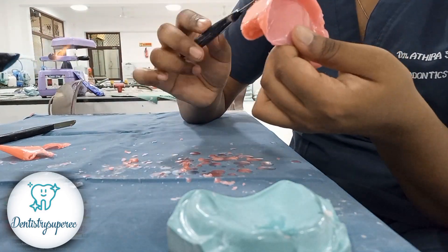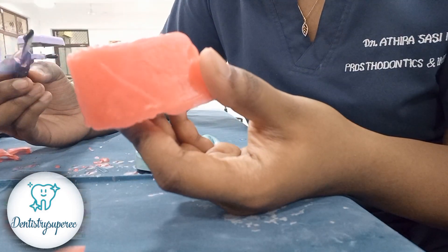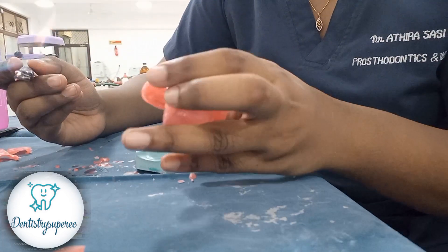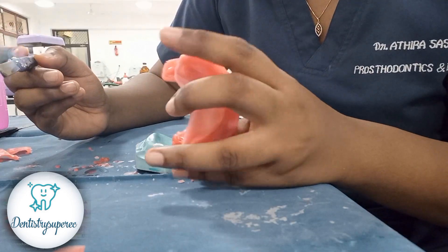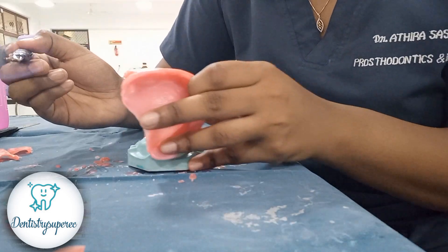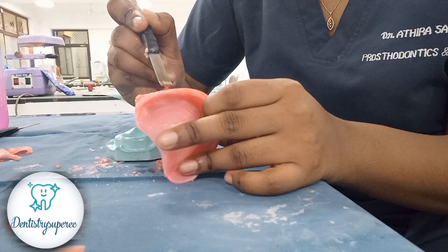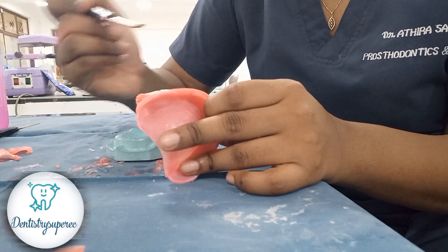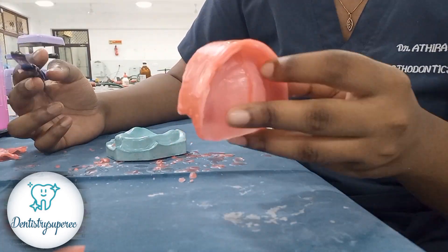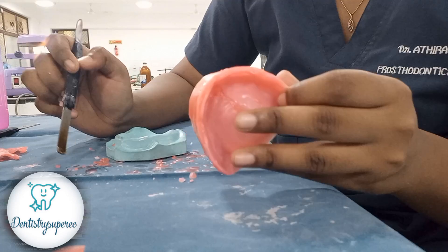While giving a smooth even touch we get a consistent layer, so I'm now giving an anterior tilt. You can see on this side a little air bubble when compared to the other side. I'm trying to remove that entrapped air bubble as well. You have to do it slowly, otherwise the wax can flow off. That air bubble is now done — even some small remaining bubbles have been taken care of.